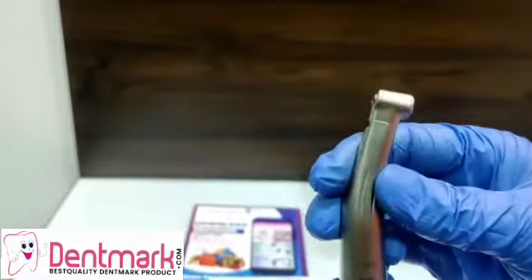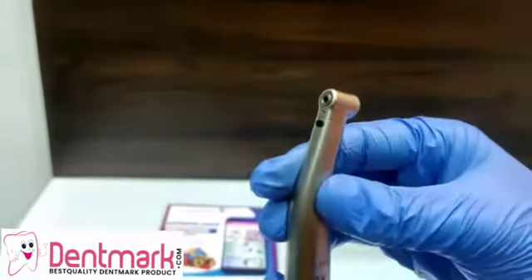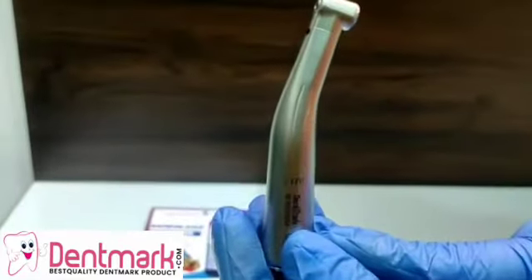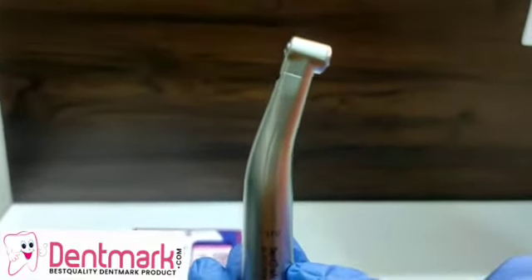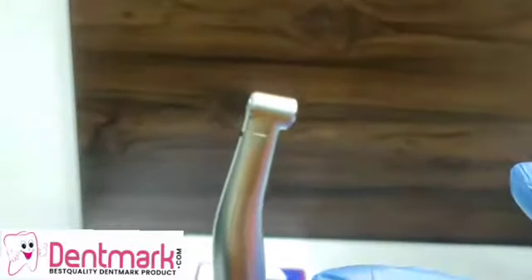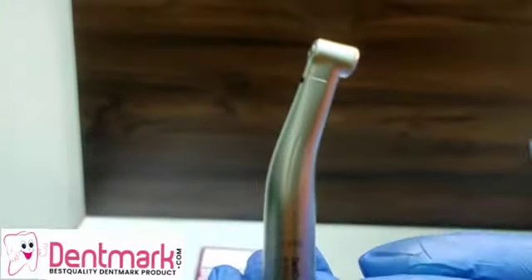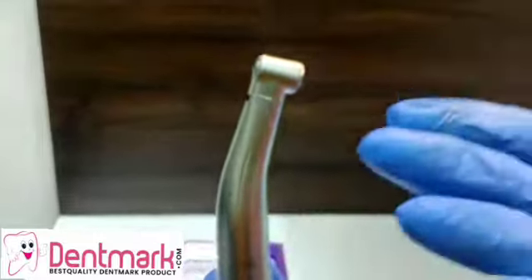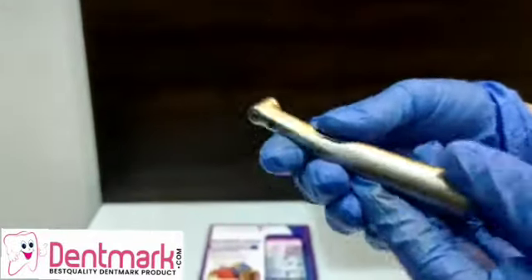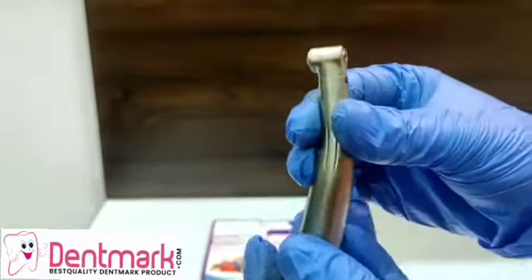The diameter of the head is very small. It comes with enhanced technology — this ergonomic design is very comfortable for the grip and operating. This is autoclavable at 135 degrees and has a dura coating which gives it a longer life. It is scratch resistant as well and very light in weight, which helps in smooth dental operations.